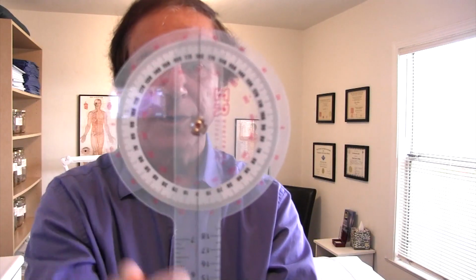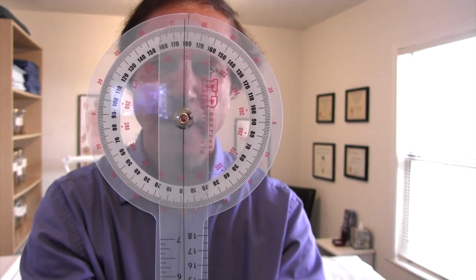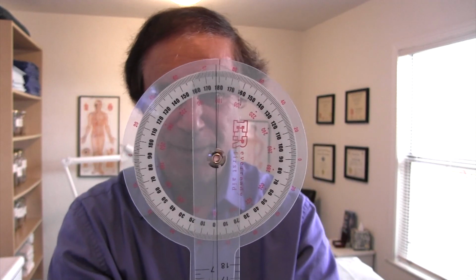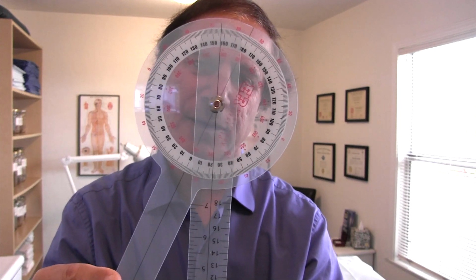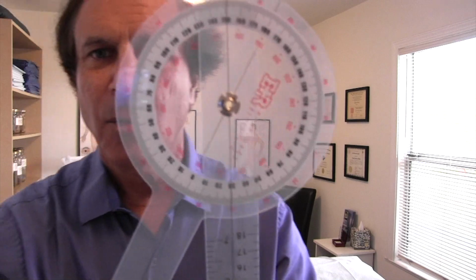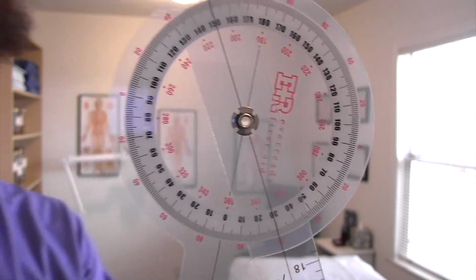So the goniometer, here it is. And you can see the measurements on there. So if you're starting, for example, in a straight line, and then a patient were to tilt to the sides, and again, I'll show you how to do this in a moment on an actual client, and client, patient, whatever, they're just people we treat, so I interchange the words. As they are tilting to the left, you would hold this behind them actually, and I'll hold it in front of me for now. And as they tilt to the left, you would measure the angle that they are laterally flexing, and then you can see on the goniometer what that measurement is. In this case, you can see that I went about 30 degrees. It's pretty simple, pretty straightforward.